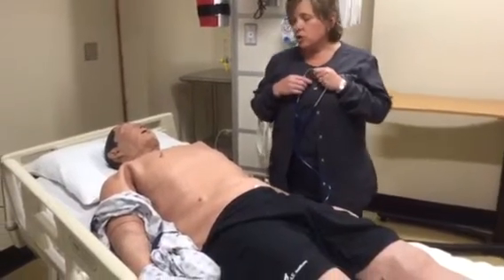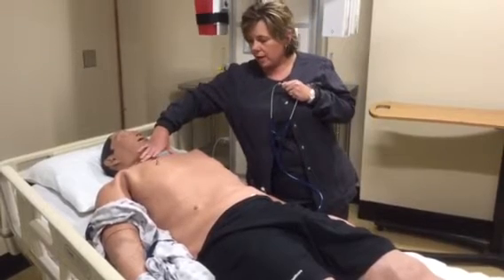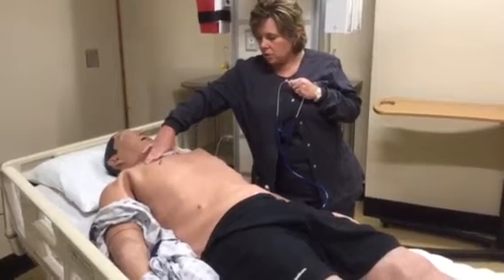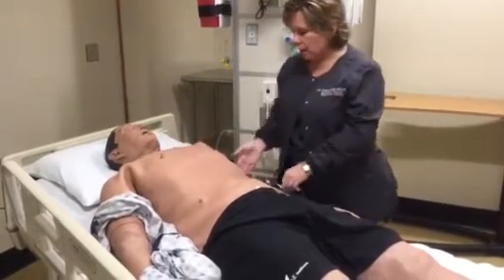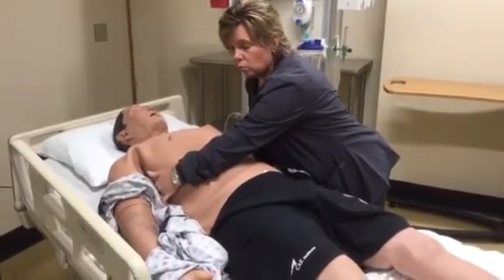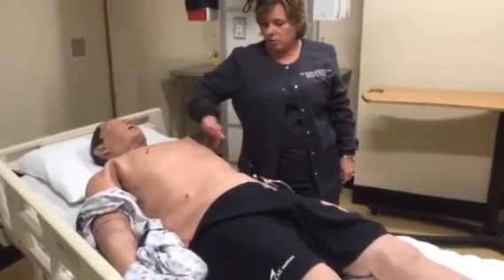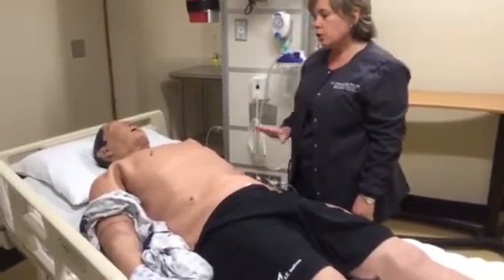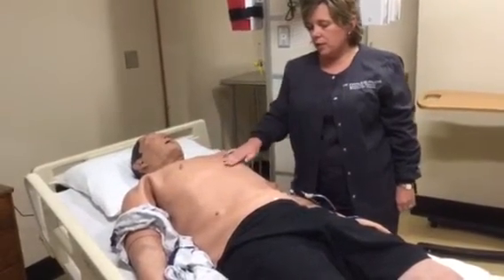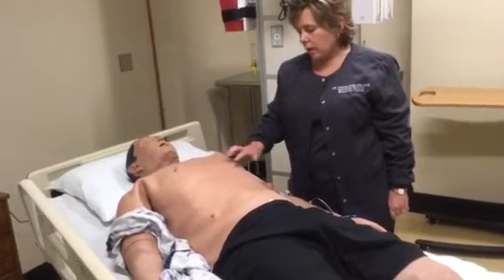So for your lung sounds, you have 4 speakers on the anterior side. You have 2 right above the nipple line on either side of the sternum. And then you have 2 in the mid-axillary line on either side. So 1 here and 1 here. That is to represent the upper lung fields and then the lower lung fields. For your heart sounds, you have 1 in the aortic area, and then you have 3 additional speakers along the other heart sound areas that you have.